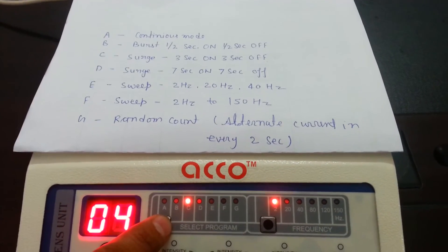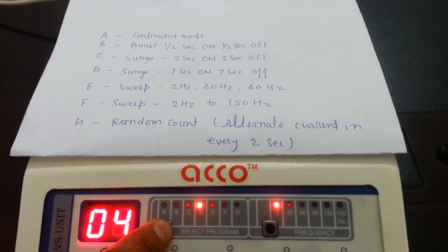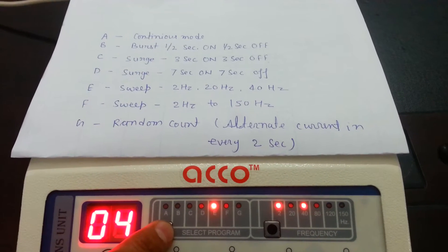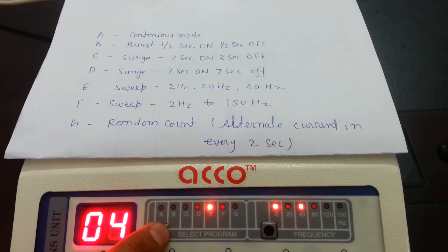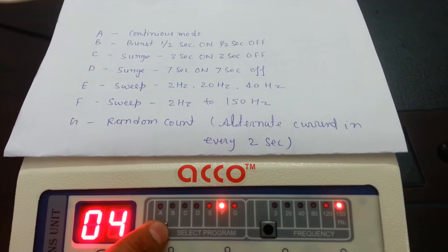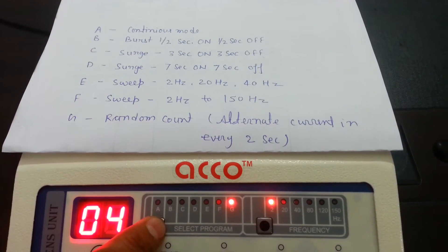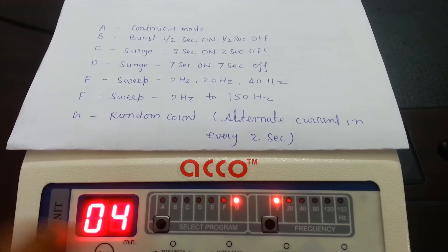C. Serge Mode. D. Serge Mode. E. Sweep Mode. F. Sweep Mode. Random Mode.